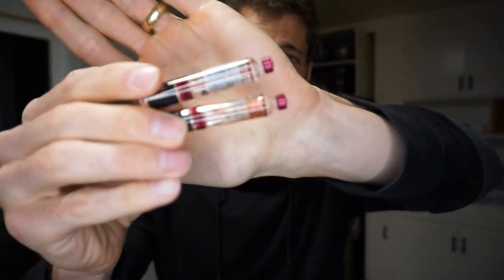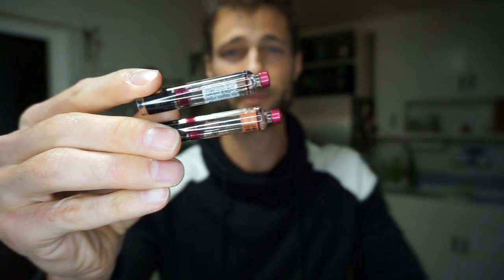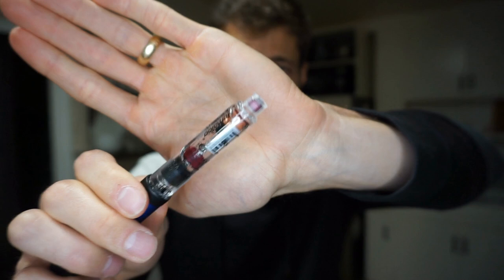I'm gonna show you what two versions of this look like. We got one on the bottom — that one's out — and one on the top that's fresh. That's just an example. I'm swapping in the fresh one. So your first step if you're on the InPen: take the cap off. I'm assuming there's a unit or two left in there, but I don't want to have to switch this out in the middle of a dose, so I'm doing it now.